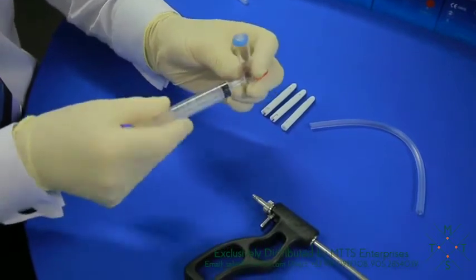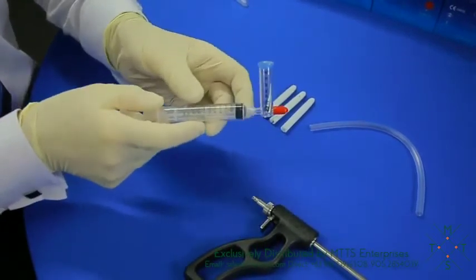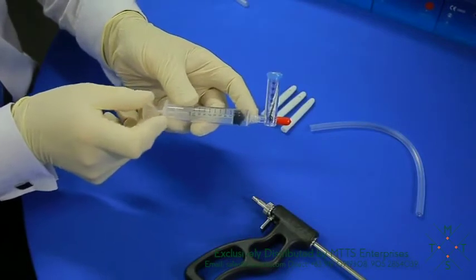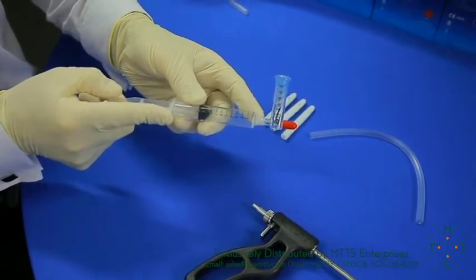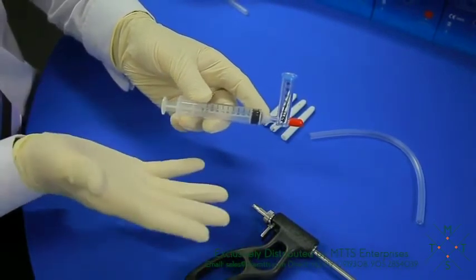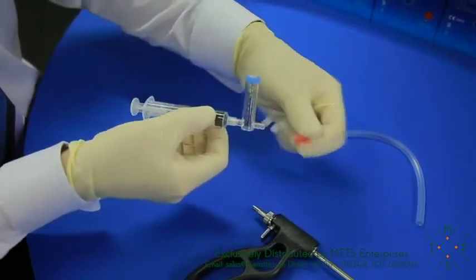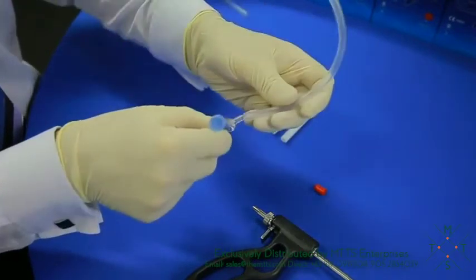We simply place the syringe onto the manometer connection port. We will then pull back, calibrate the manometer to below minus 300 centimeters H2O. We will then release the syringe plunger into a neutral position, remove the end cap, and place on the tubing.